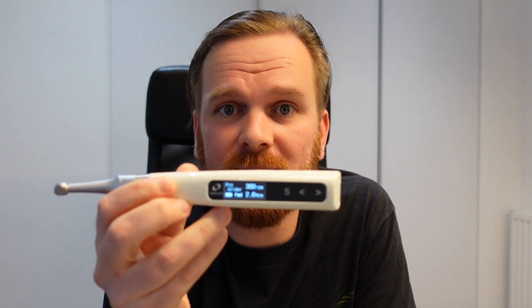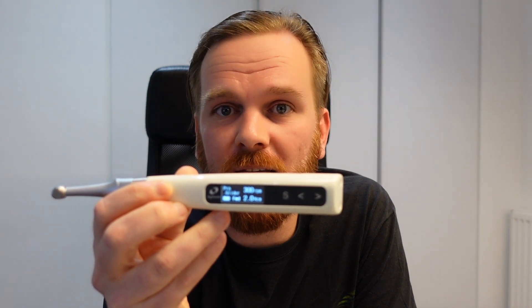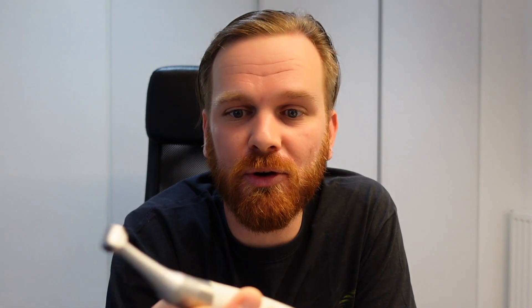I don't know how they did it but it's an amazing battery. The reason is it doesn't have a flashy screen, no backlighting, none of those things that consume a lot of power. It's a simple screen, so it doesn't use a lot of energy from the battery — and that's perfect. This thing does exactly what it needs to do for a very reasonable price.